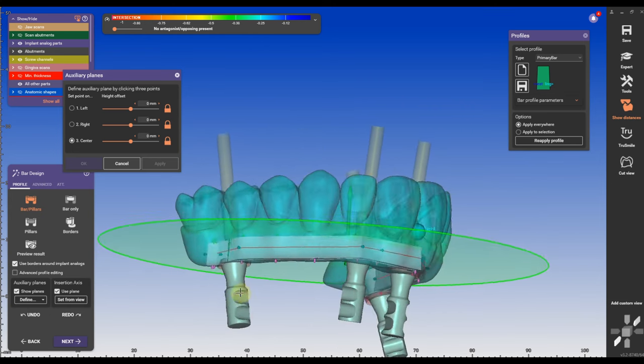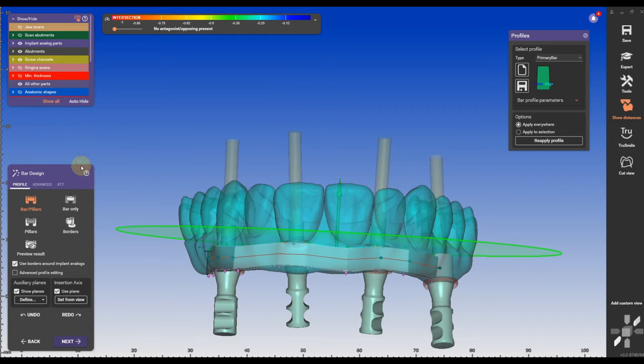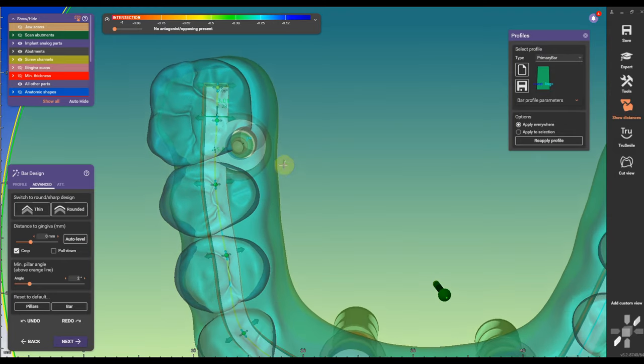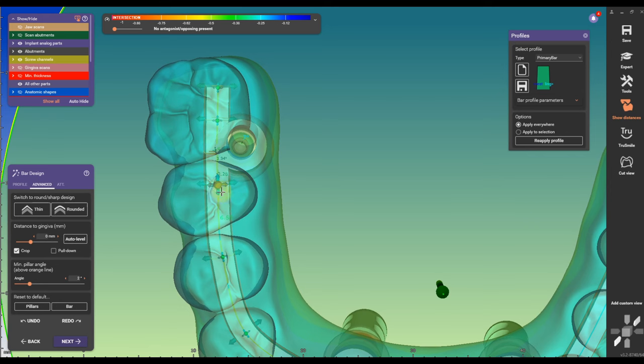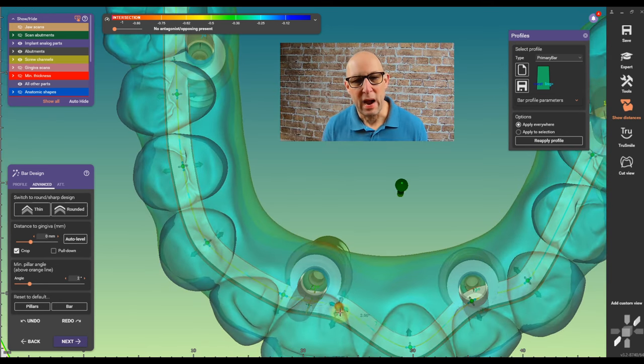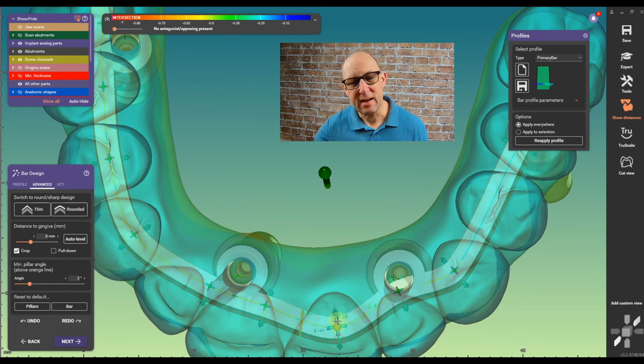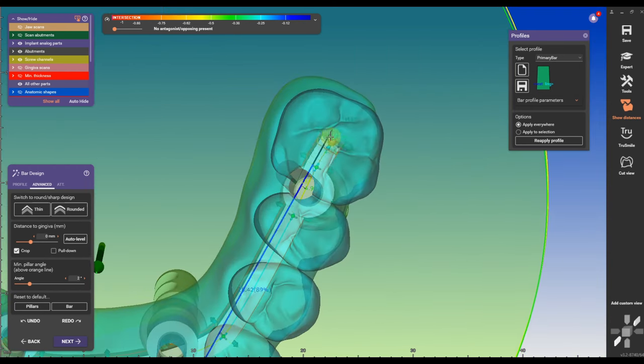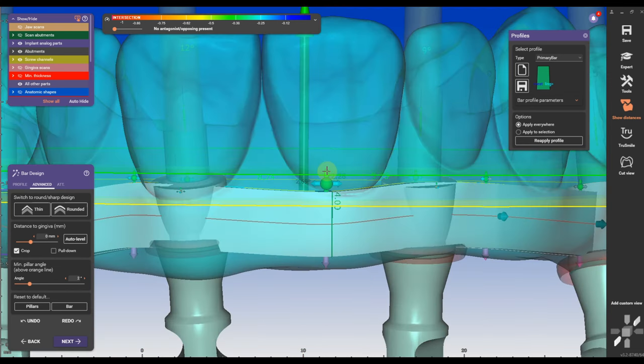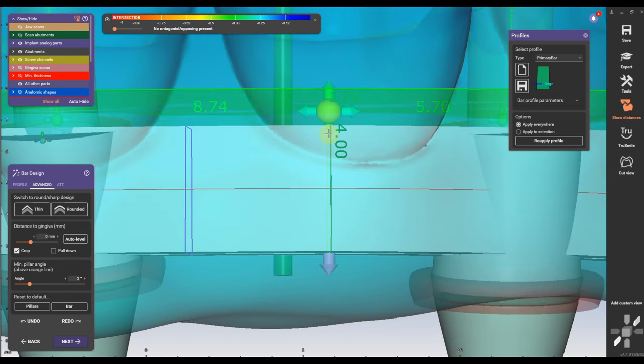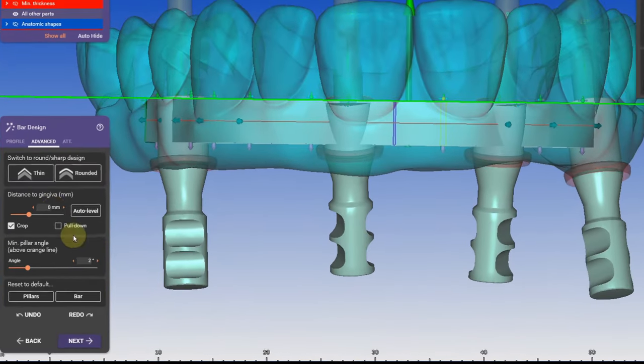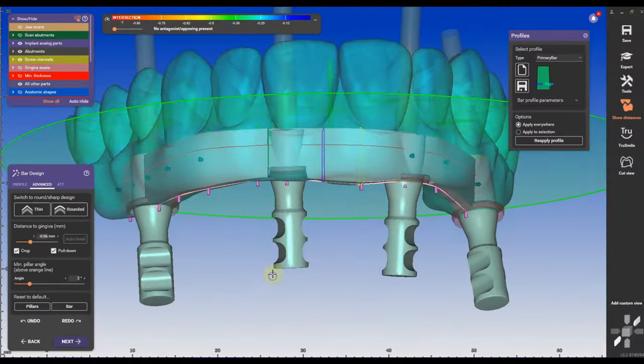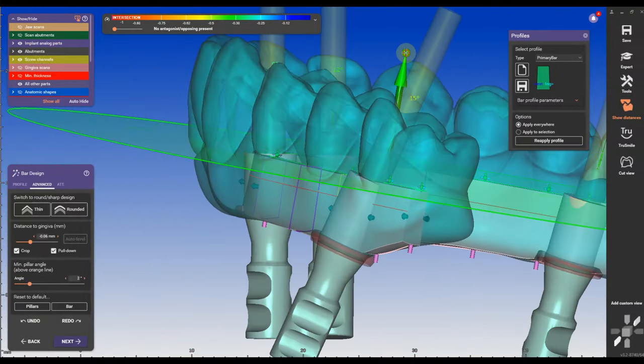The first thing is I'm going to assign my occlusal plane so to speak with three points, click on advanced and then rounded. I'm going to move the edges, sometimes they tilt in a little bit, I'm going to move them out a little bit and make the bar straight so it's in one nice line. You can grab the little dots that are on sides of bar and make it nice in a nice curve. You have to do it on both ends then double click and hold control on the little arrow there. It will snap the bar to the occlusal plane.